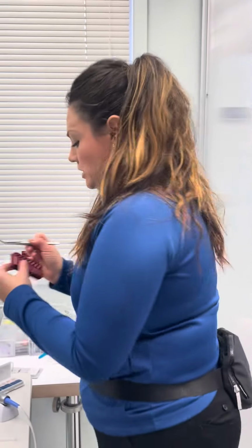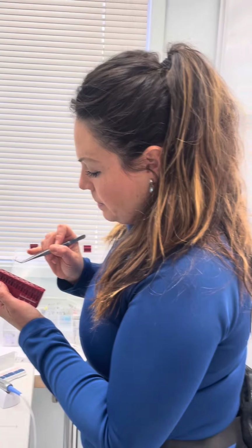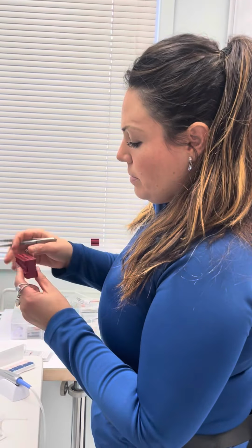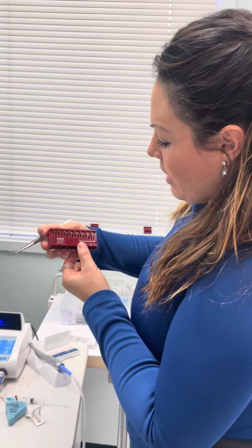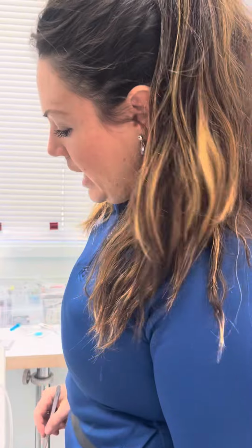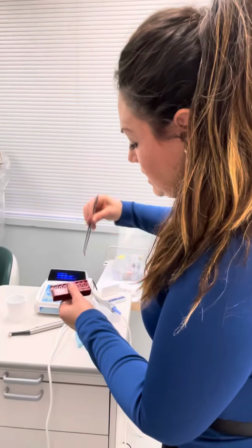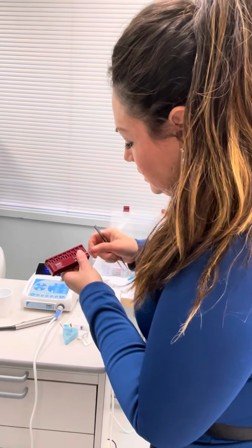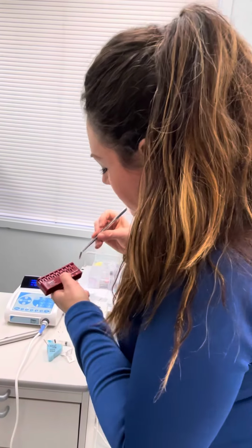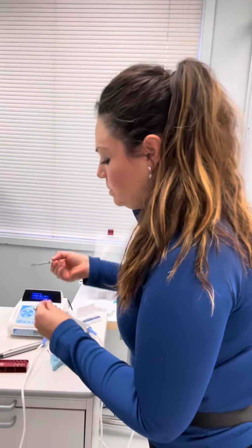This is kind of fun because you got it at your 20. What do you call that block? I will have to double check on that. I don't remember what the official name is for it. So you've got it at your 20. Or the doctor could do this, or I saw that you guys had the ring, basically 20 right there. Dip it into the sealer.